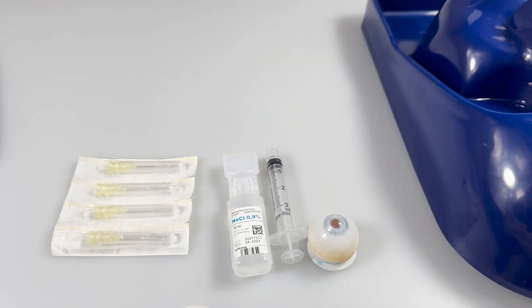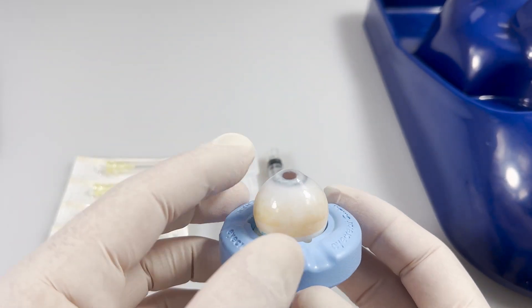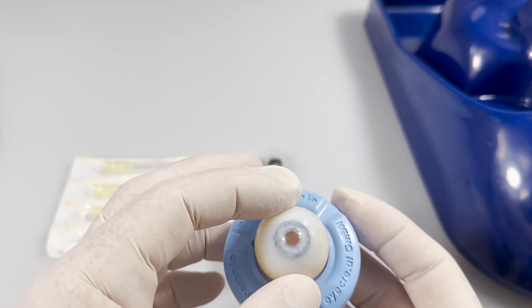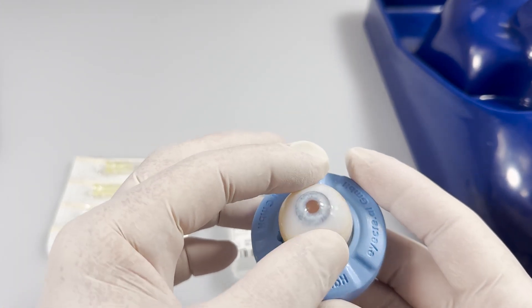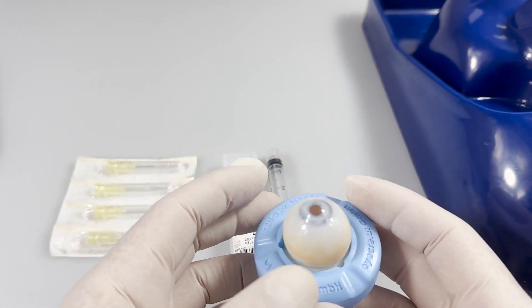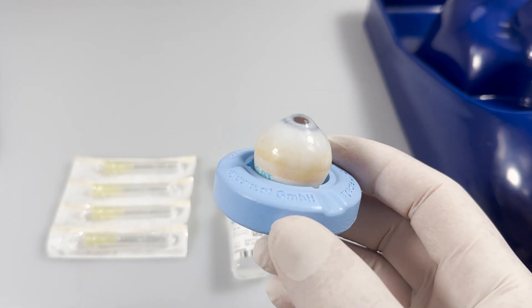So I use one of our pads. Just put it in. As you see, it's still moving. It's also very good if you want to do a demo with your microscope, because it looks really realistic. It's a very beautiful eye.